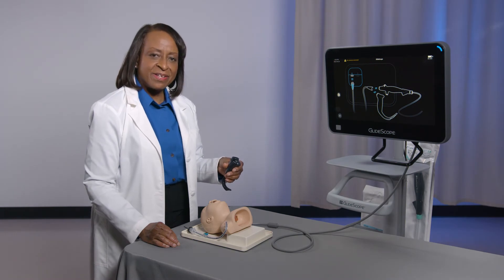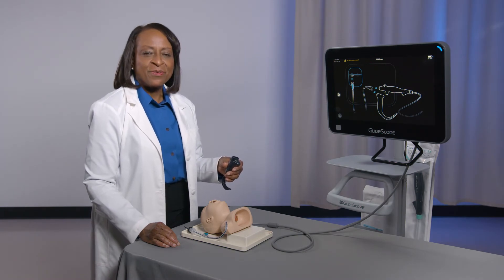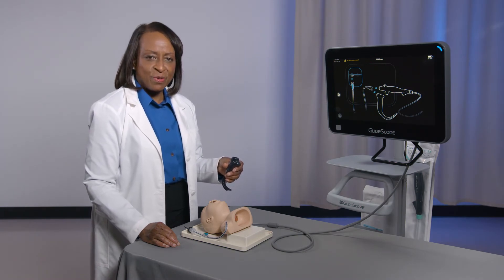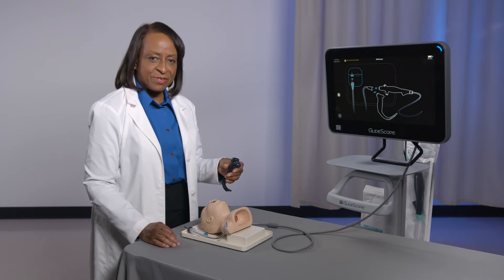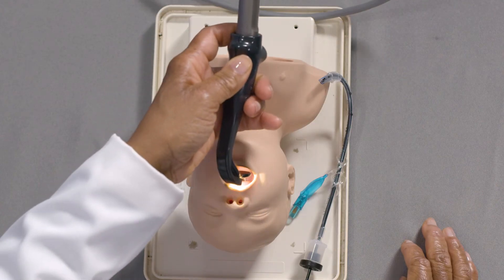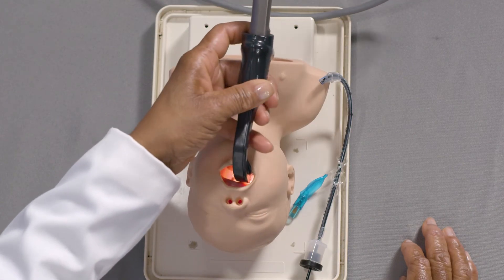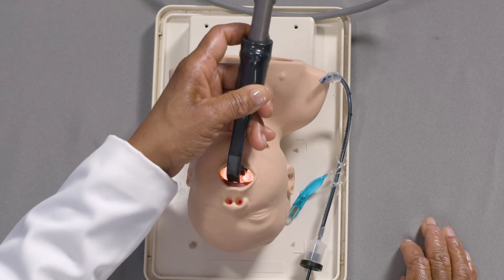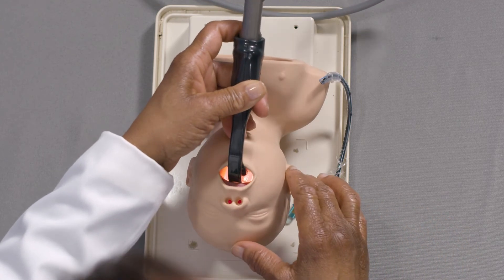Today, I'll be using a GlideScope Core video monitor with a Spectrum Lopro S1 video laryngoscope on a pediatric mannequin. In step one, look in the mouth, insert the blade midline, and advance the tip of the blade until it goes around the base of the tongue.